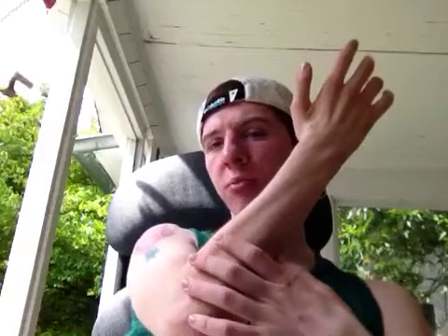Check your skin often — after about 10 minutes, see if there's any redness. There might be a little bit, but if it looks really bad, stop. The finger flexion spots are one right here and one right here. For finger extension, you're going to want to get these muscles — put the big one right here, and the little one right up here.